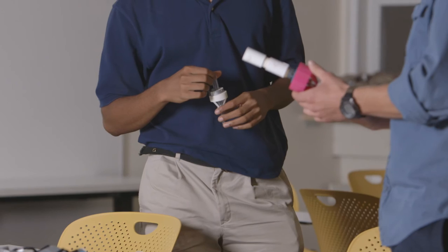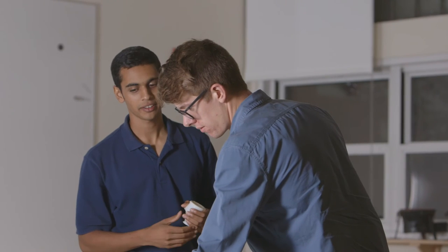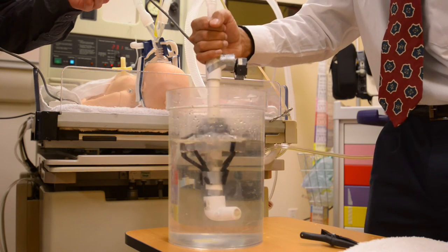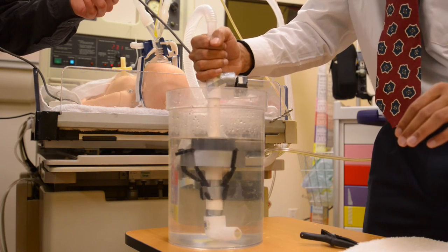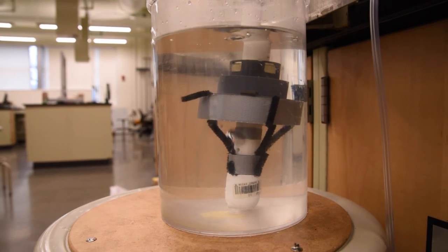This is an add-on to CPAP to convert a CPAP setup into a pressure ventilator, which is a huge deal for places in Nepal because they can afford CPAP but they can't afford pressure ventilators. Anybody sicker than what CPAP can treat just dies. With our device, we're looking at a price point of about $25, whereas a typical bubble BiPAP setup will cost anywhere from $2,500 to a more expensive ventilator that would be maybe $25,000.